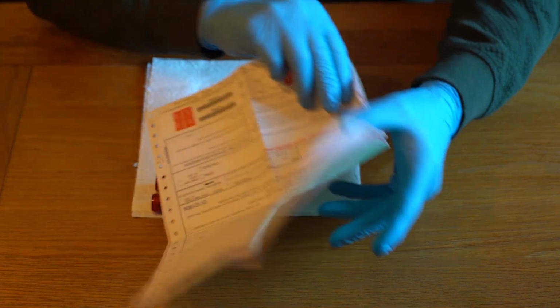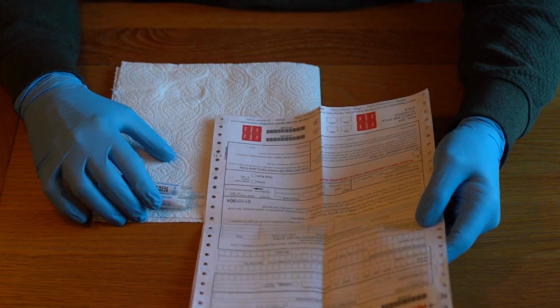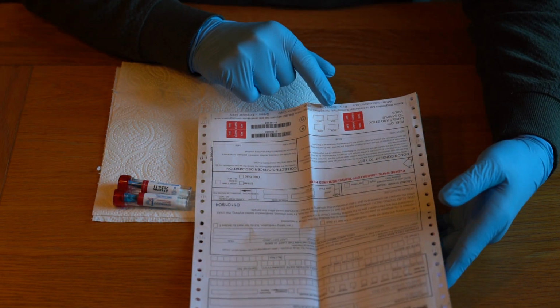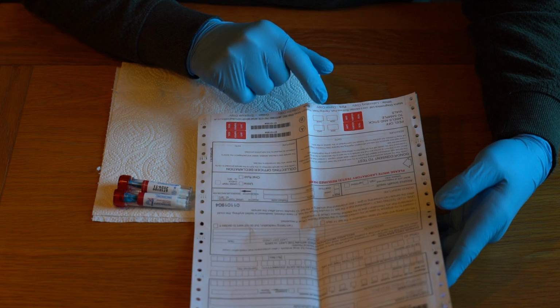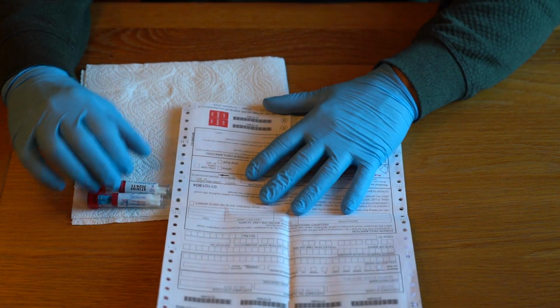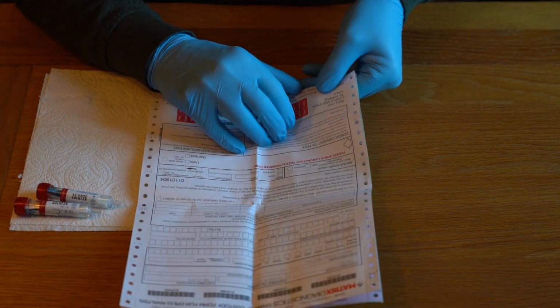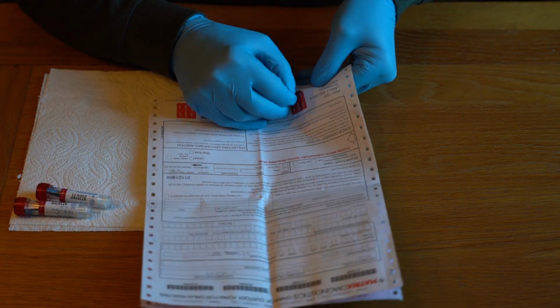and we come back to the form. And so what we did when we went through the form, we got the donor or employee to initial and date the two anti-tamper seals at the bottom, one marked A and one marked B. So let me show the easiest way to do this. So I'm going to take the bottom one. It's easiest to do it that way round.